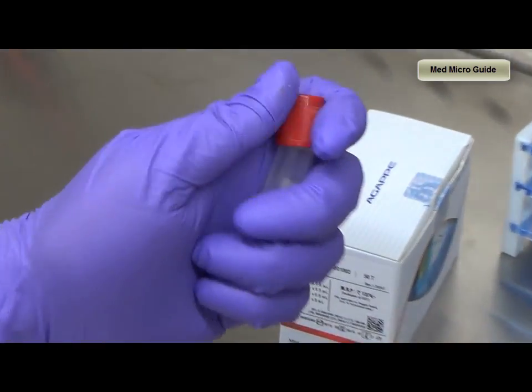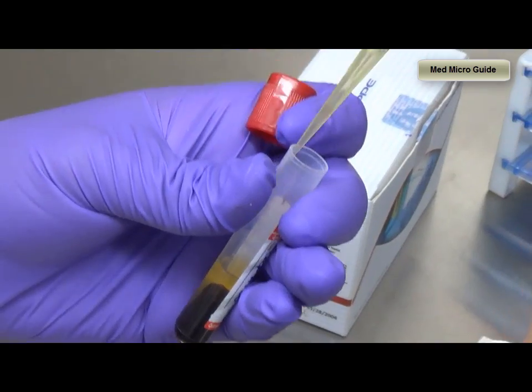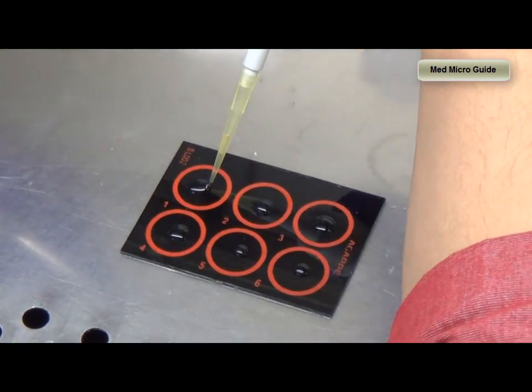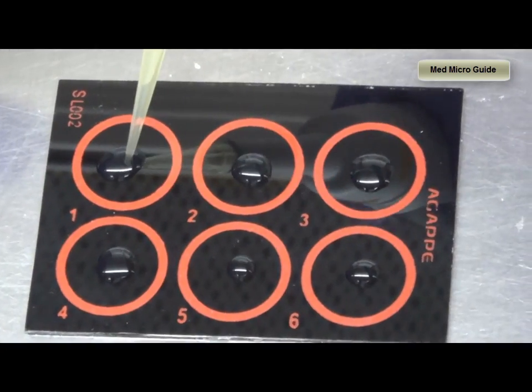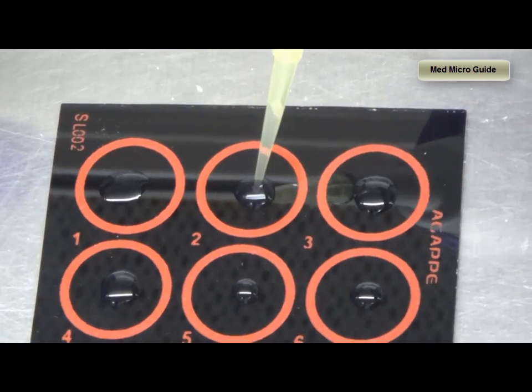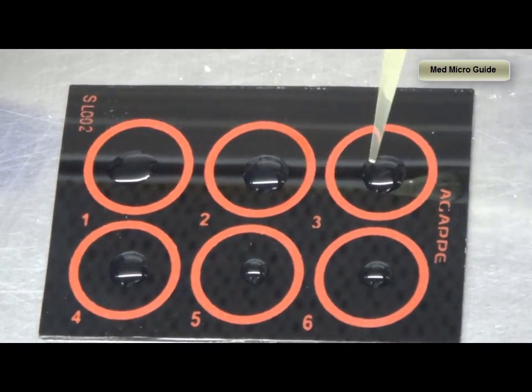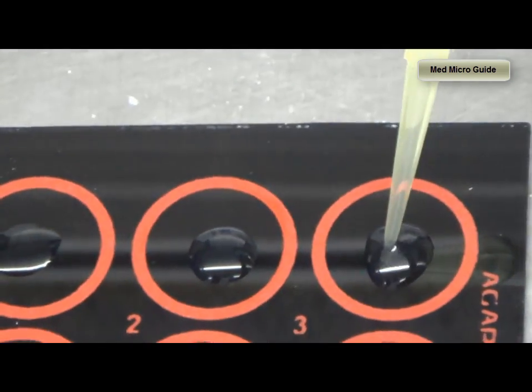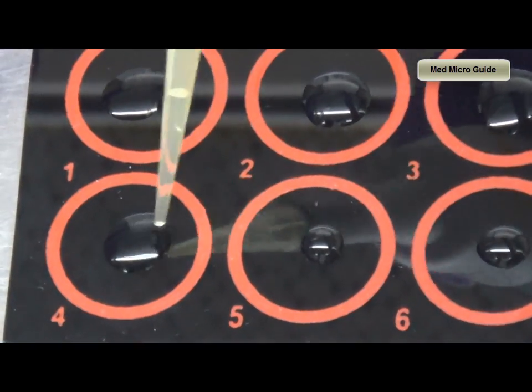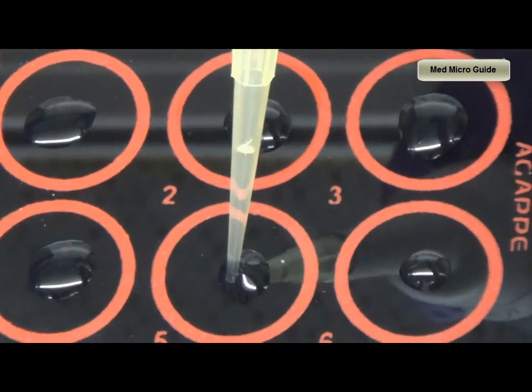To the first circle, we will add 50 microlitres of the serum. When we mix 50 microlitres of serum with 50 microlitres of saline, the final dilution will be 1 in 2. Now from the first circle, we will transfer 50 microlitres to the second circle. Like this, we will go on diluting the serum from 1 in 2, 1 in 4, 1 in 8, 1 in 16, 1 in 32, to 1 in 64.